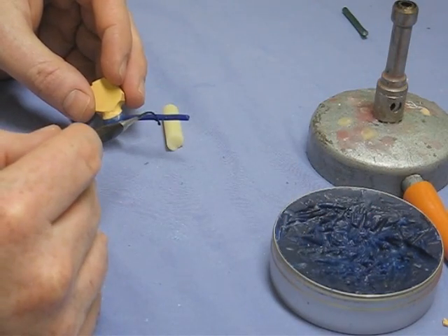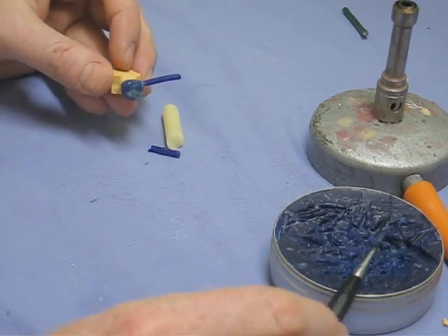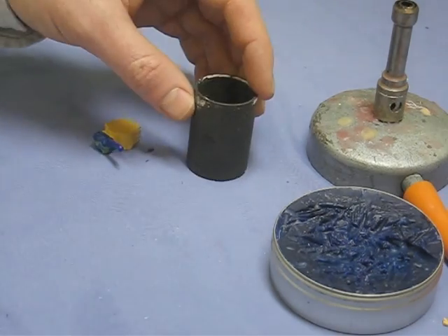Just decreasing the length of the sprue here. The length of the sprue is quite important. You'll see when we mount it in the ring former.